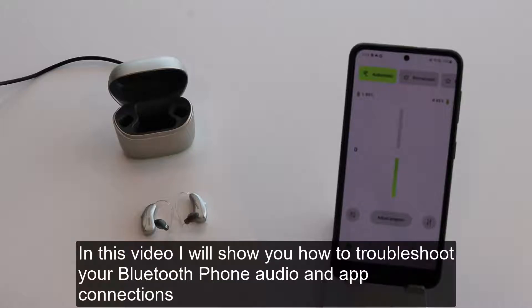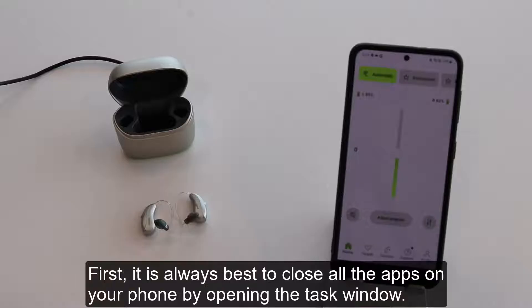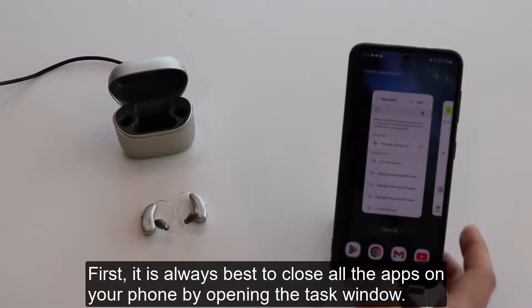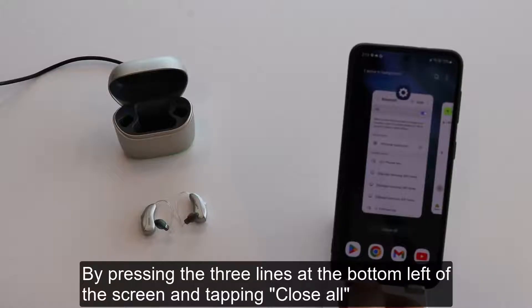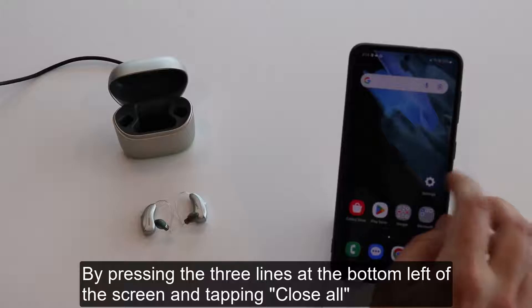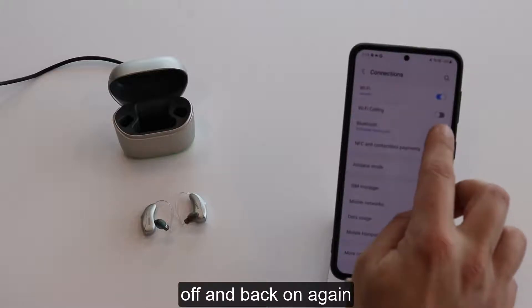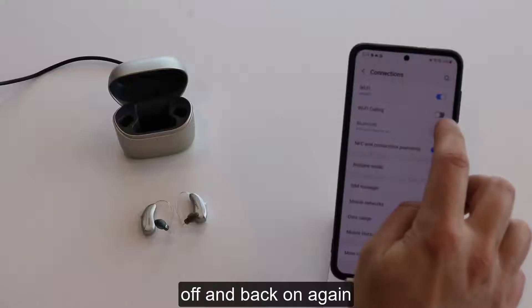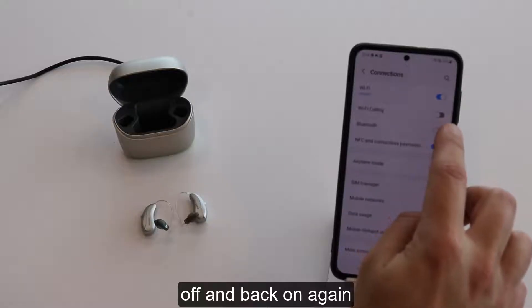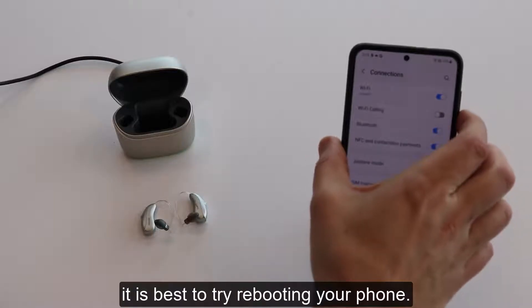In this video, I will show you how to troubleshoot your Bluetooth phone, audio, and app connections. First, it is always best to close all the apps on your phone by opening the task window, pressing the three lines at the bottom left of the screen, and tapping Close All. Then, toggle your Bluetooth off and back on again. And finally, it is best to try rebooting your phone.